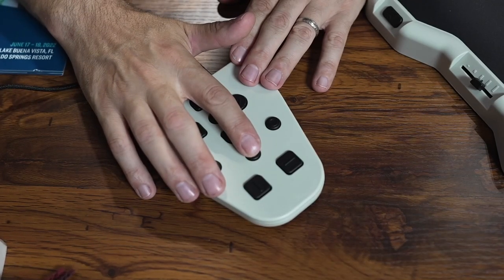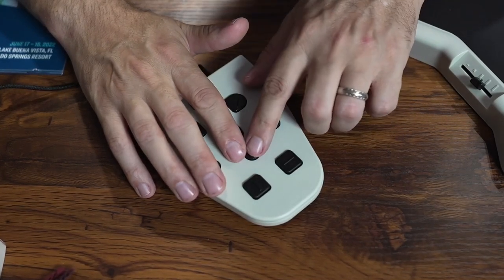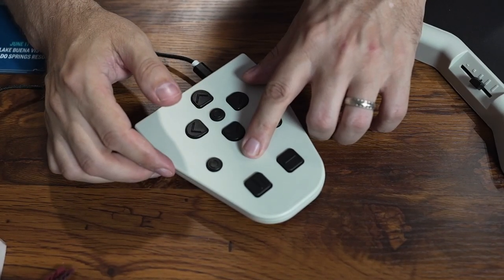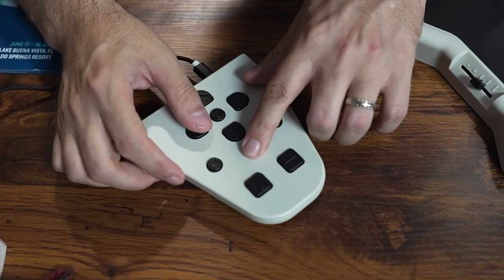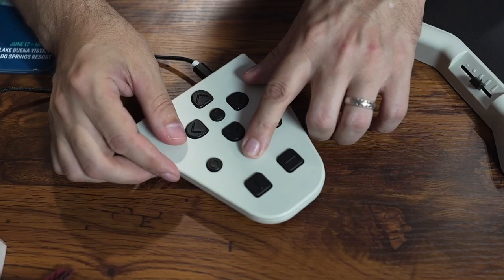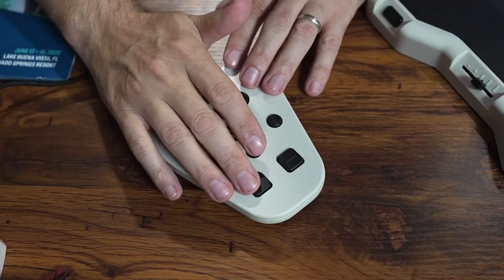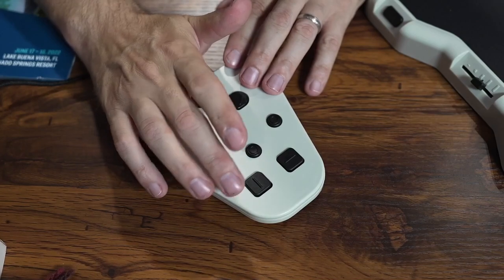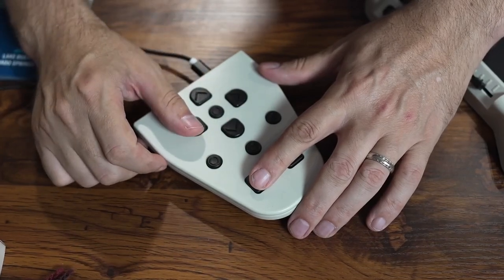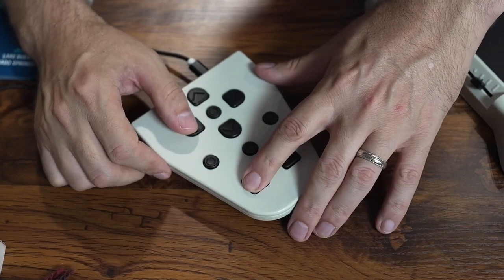Right below the bottom arrow is the help button. If I long press this button and then press any of the other buttons, it will tell me the function of that button — for example, "When up arrow button is pressed, Lyric will change the item. When left arrow button is pressed, Lyric will read previous item." Then there are two buttons at the bottom for saving the current document. If I long press one of those and then press one of the four directional arrows, it assigns the document to that specific button. The device confirms: "Page saved."